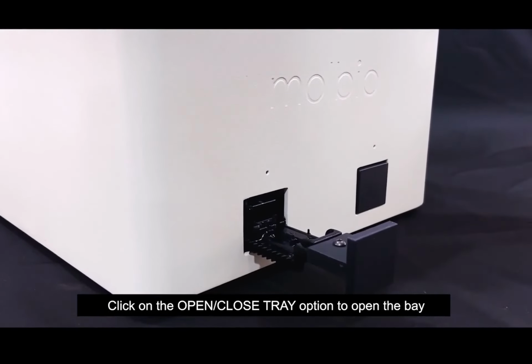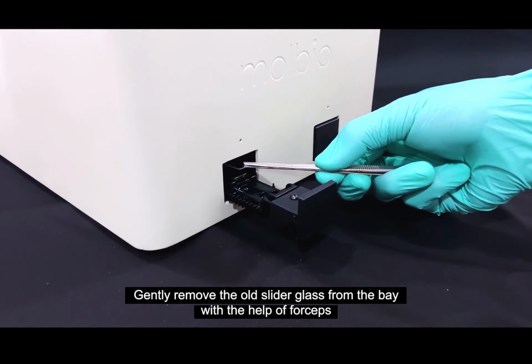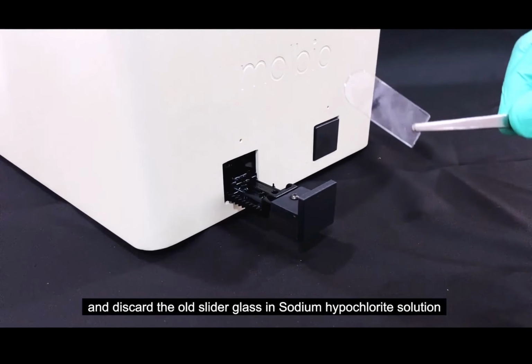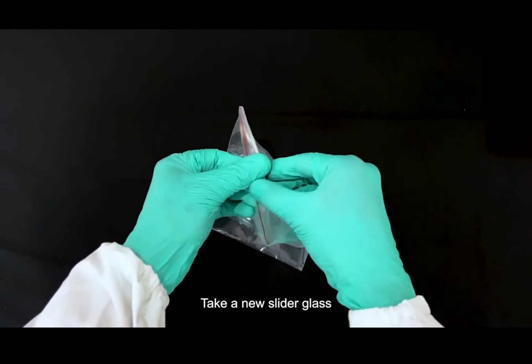Then your chip bay will open. Here you can see there is a slider glass. You can use any tweezer or forceps and remove the slider glass. This particular glass, as you can see, the transparency is not that good. So now we take a new slider glass.